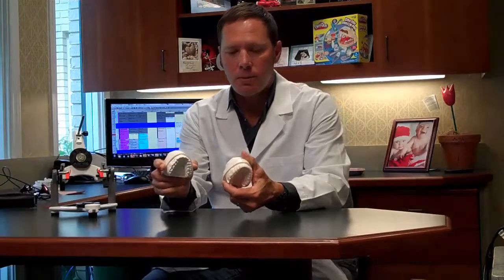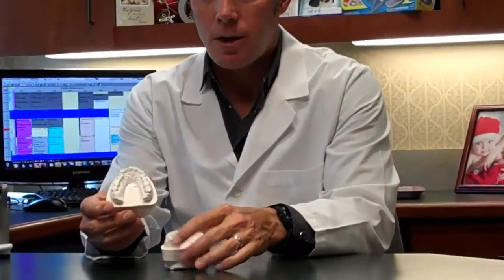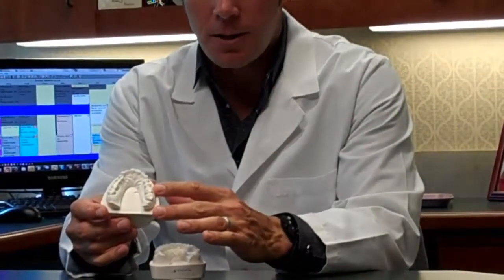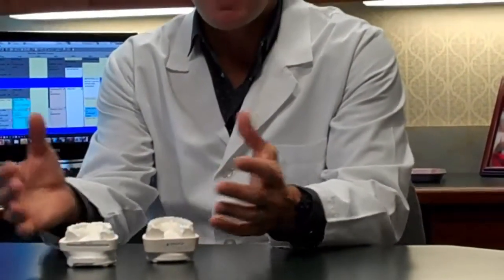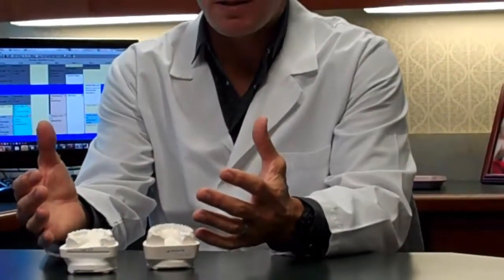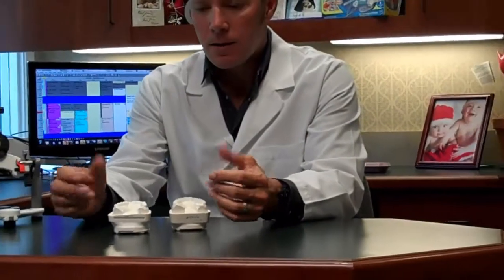The key is to give the patient the smile they want, and the way we do that is to design the smile first on models before we implement the plan. We get impressions of the patient's teeth, then try to get photographs of smiles that are attractive to the patient, because teeth come in all sorts of different morphological shapes, and then we get photographs of the patient's teeth.